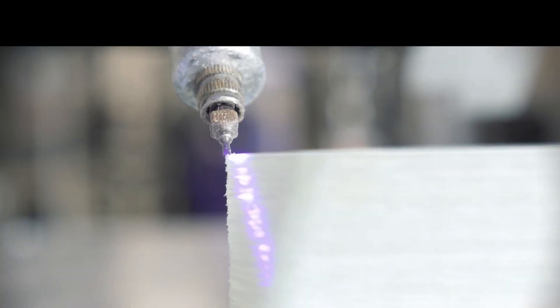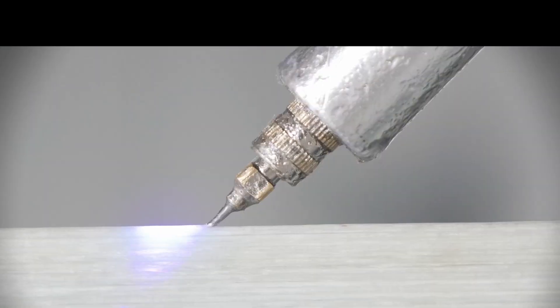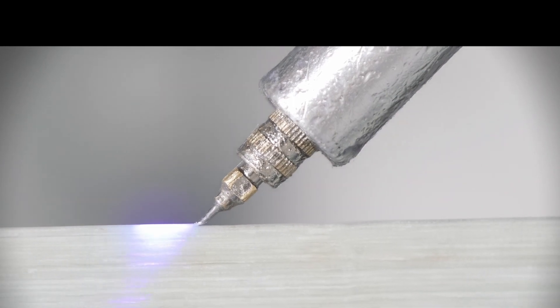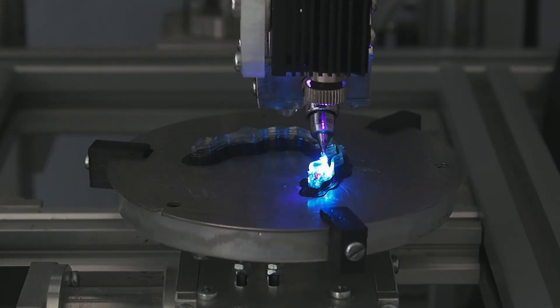High Fiber is made from translucent, strong, lightweight material and exclusive 3D printing technology for natural bone-like behavior, enhanced adhesion, and personalized patient care.